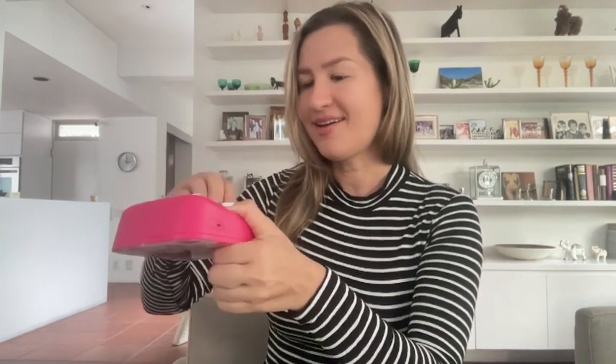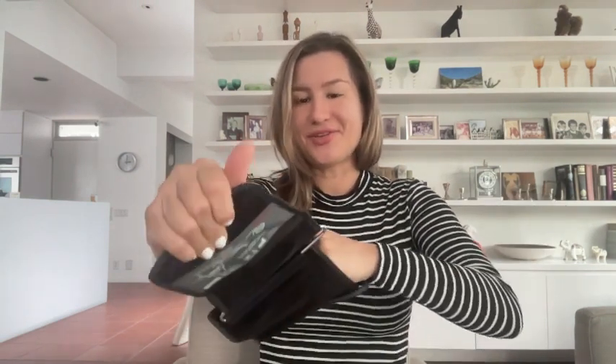This is pretty self-explanatory — I did not even open the instructional manual. Here are the four simple batteries. I'm surprised they're included; it's a very nice, thoughtful touch. It shows you the charge of the batteries. I didn't scan the QR code just yet because I'm going to be setting it up in a separate video.